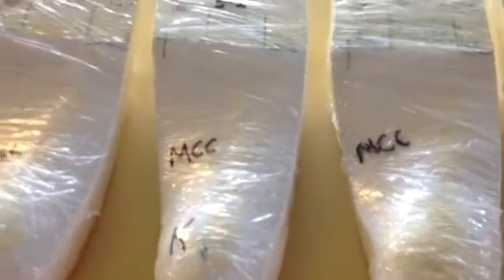The next one is also a five-degree inversion, and then you add the medial column correction and the medial Kirby. This is another very common modification. My partner, Dr. Bill Olson, used this routinely in his carbon graphite orthotics to get more varus support. The Kirby typically gives me about two degrees of correction, the medial column correction gives another degree, and poured at five degrees, you can get up to eight degrees total — extremely good for runners who have a lot of running limb varus.